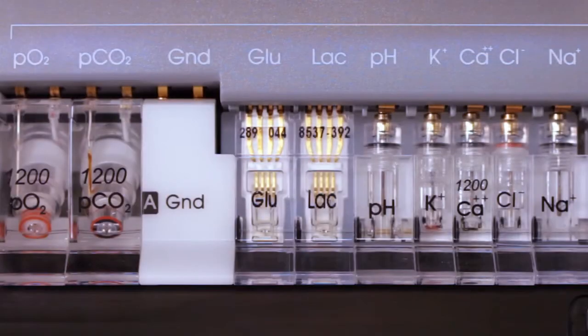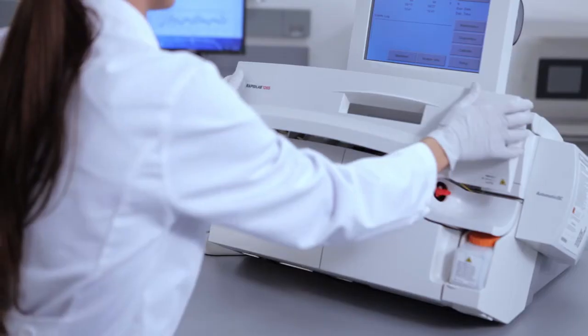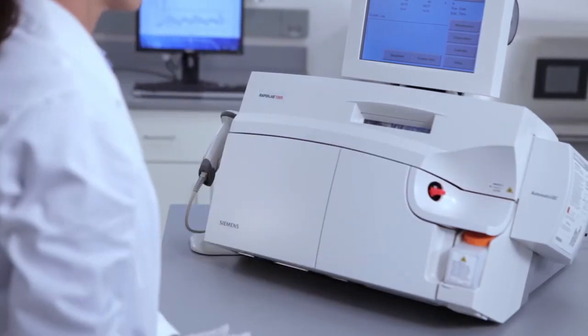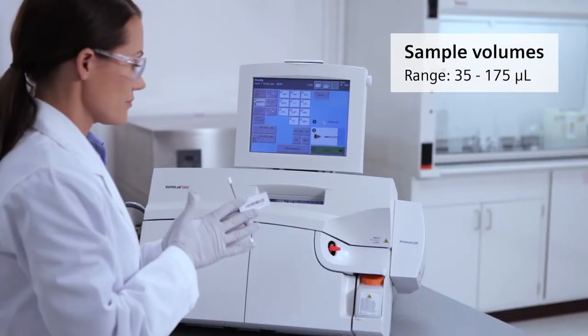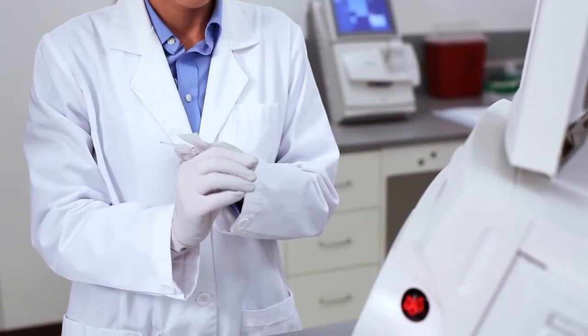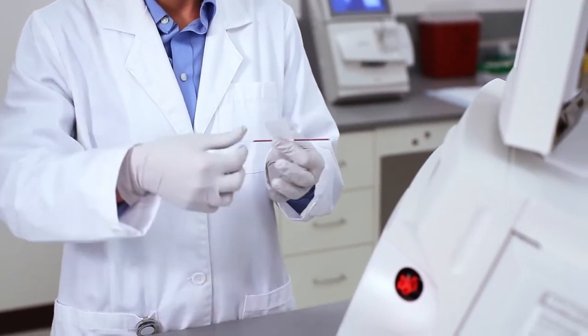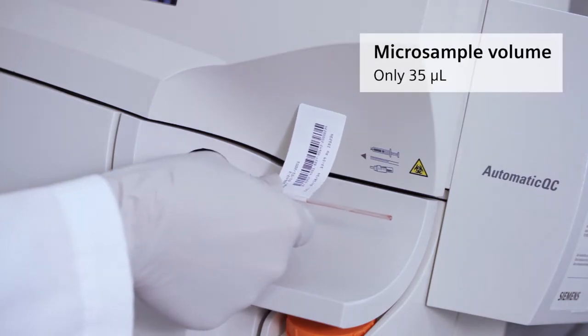All use the reliable, long-lasting ready sensor electrode technology which requires little to no maintenance. Typical sample size is 175 microliters of whole blood for all parameters. But depending on the analytes and sample types selected, results may be available on as little as 35 microliters of whole blood.